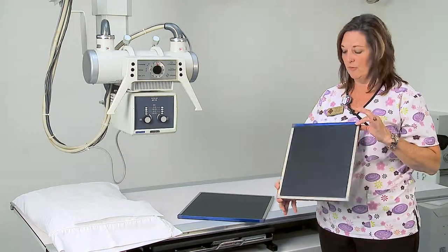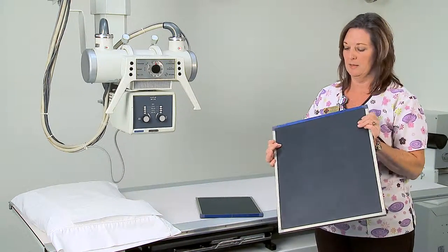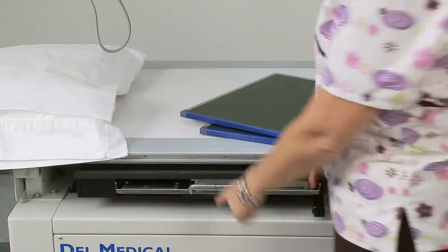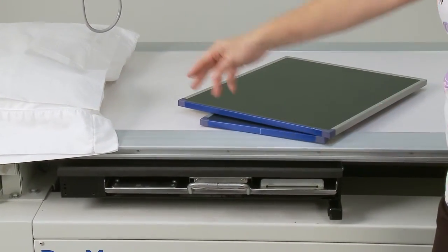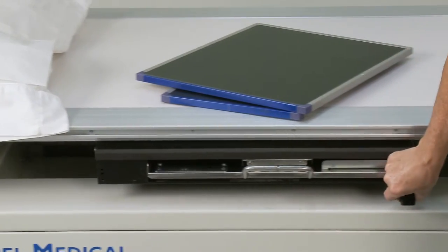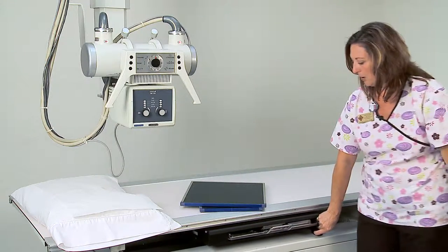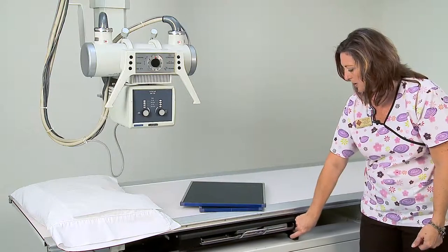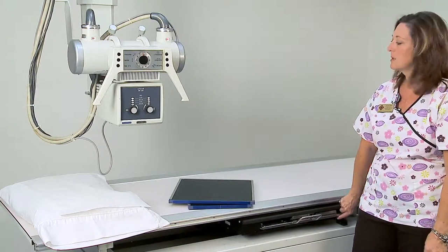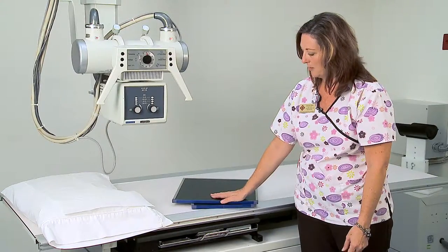We have a 10 by 12 inch cassette or image receptor and a 14 by 17 inch cassette or image receptor. This is called a bucky tray, and this is your bucky handle. You can move the bucky tray up and down the table by depressing the button on the arm. This helps us better align our cassette to the body part — if we are taking an x-ray of a patient's leg we want the cassette further down, and for the shoulder we want the bucky tray closer up.